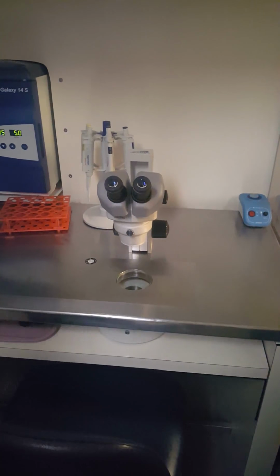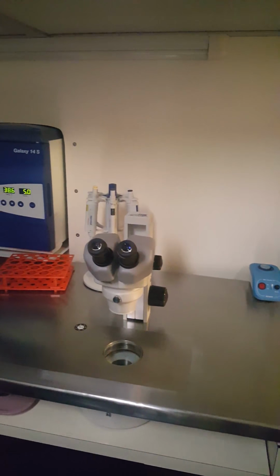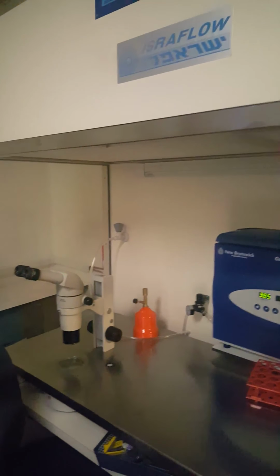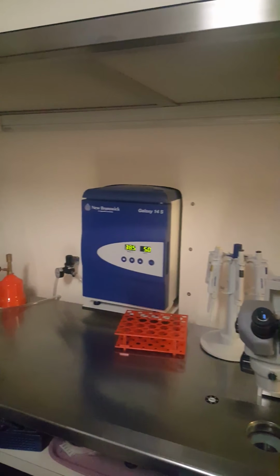Clean room, it's the IVF room, it's well equipped. So let's go from this side. We take the whole side and we go to the bench in order to pick up the good quality oocytes according to their morphology. We don't do anything invasive. You can see that the microscopes are inserted in the bench, and this part of the bench is warm. This is cold and this is warm, but we have to put on the circulation. Warm water with circulation. There is a bath. So within half an hour we get a warm bench.